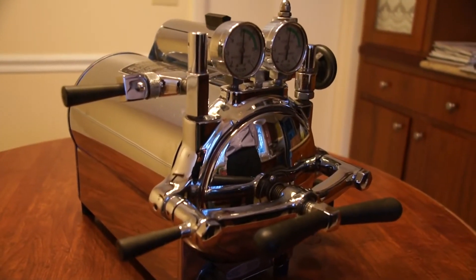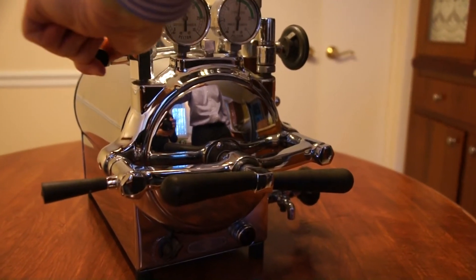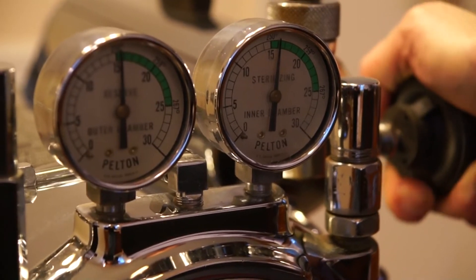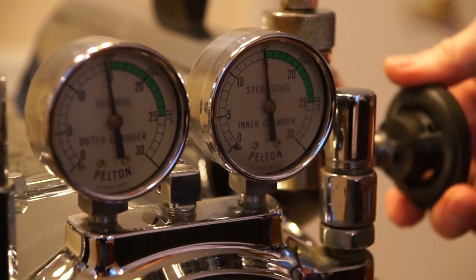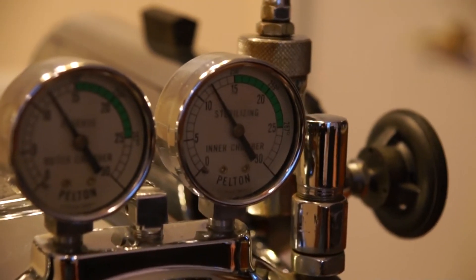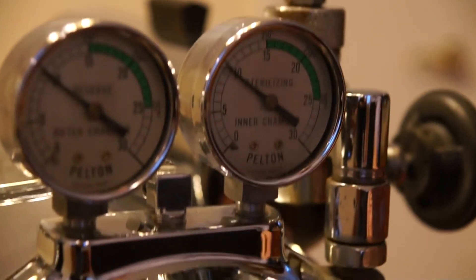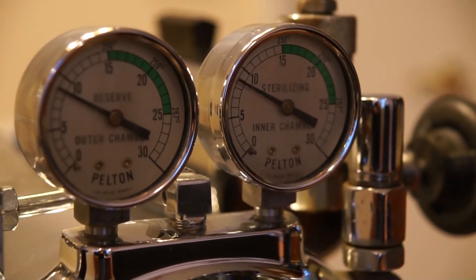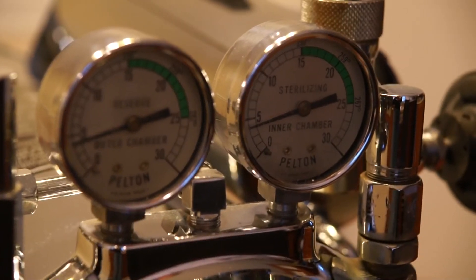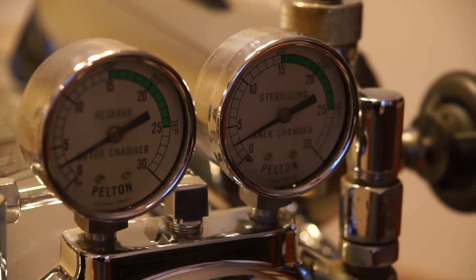Now we will prepare to release the pressure, which we do with the upper left-hand valve. We will open it and there will be a drop in the inner pressure. We can watch the right-hand gauge as we open the upper right-hand valve — that will start to drop the inner pressure. That is releasing steam, condensing to water back into the reservoir. We'll keep that on to keep from burning ourselves. You can see both the inner and outer chamber are decreasing. It's not safe to open up the chamber until we've reached zero. Always remember to turn the power off when you're getting ready to unload, and to open up your left-hand upper and right-hand upper valve — that will drop the inner and outer chamber pressures to zero.